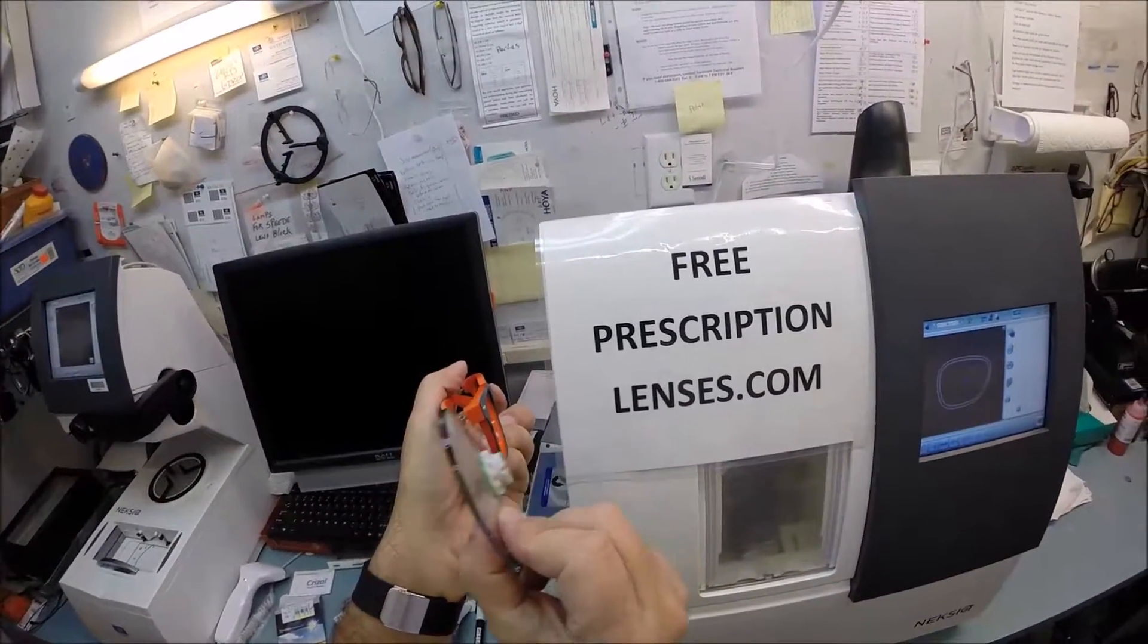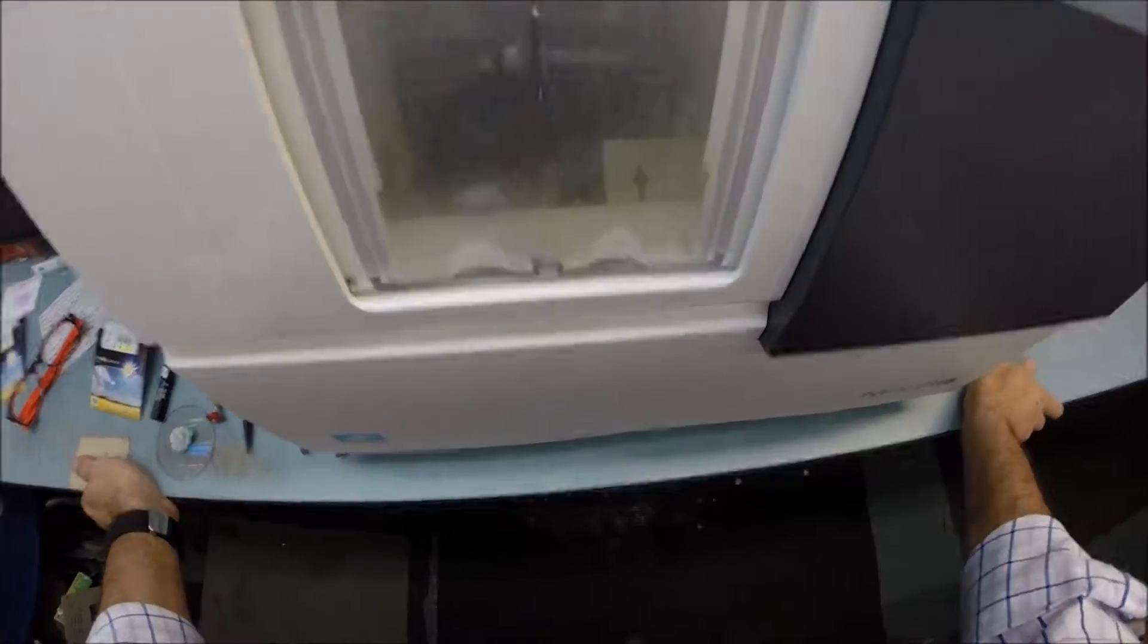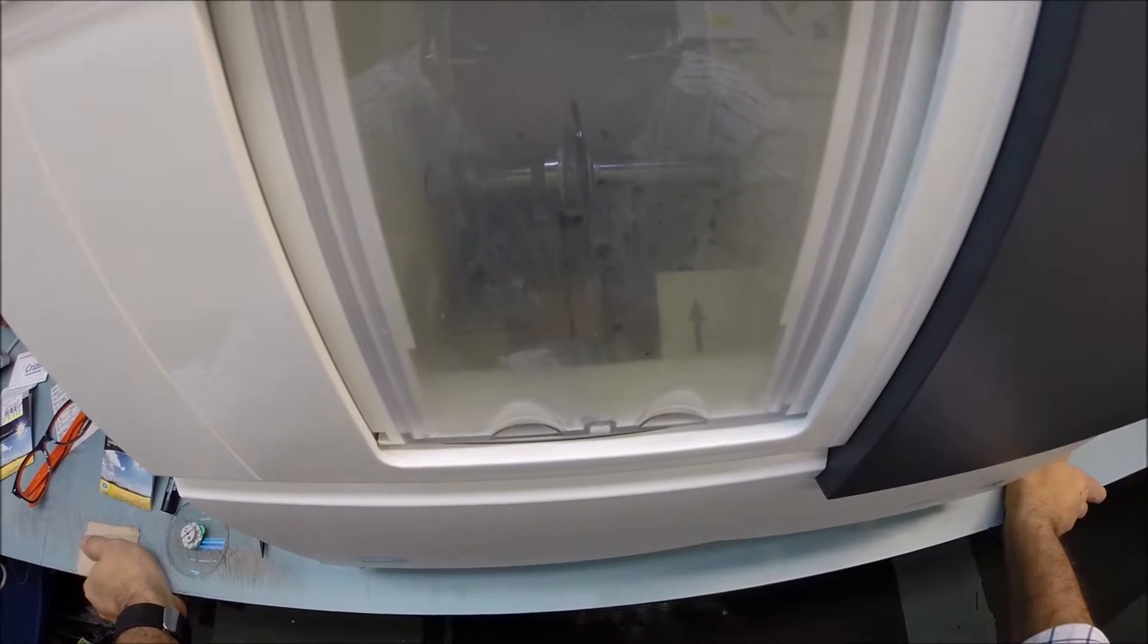It knows exactly where to place the bevel so it will fit best inside your frame. Your lenses are very thin, so it's not going to poke out. But if these were thick lenses, it could move the bevel front or back.